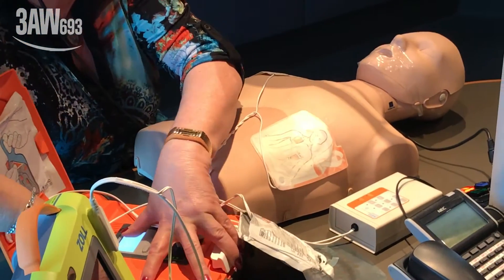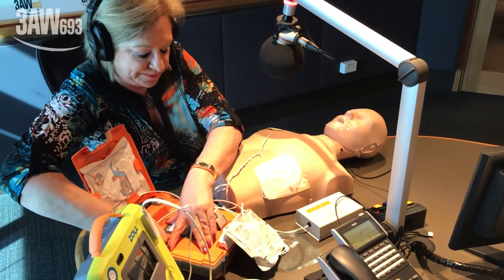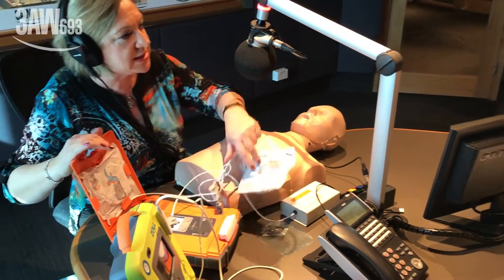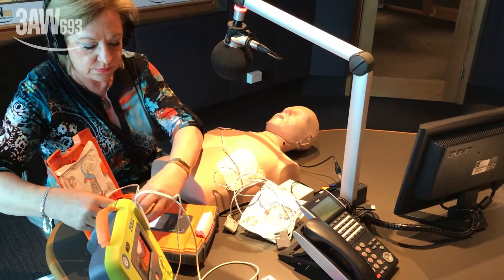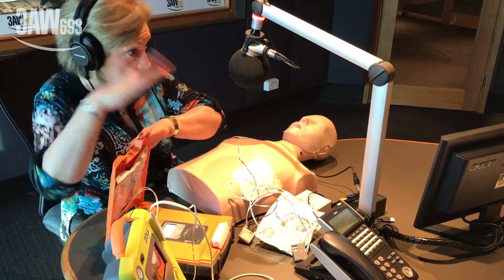The demonstrator turns it off after the shock has been heard, and the device goes into a metronome mode. That's fascinating — it's so easy to use. That's less than 90 seconds from start to shock. The device is now also telling you how to do CPR.